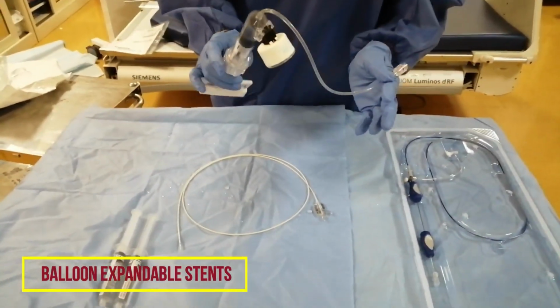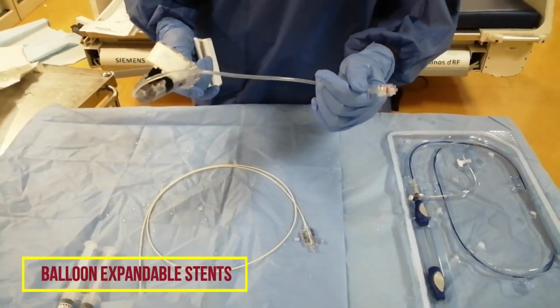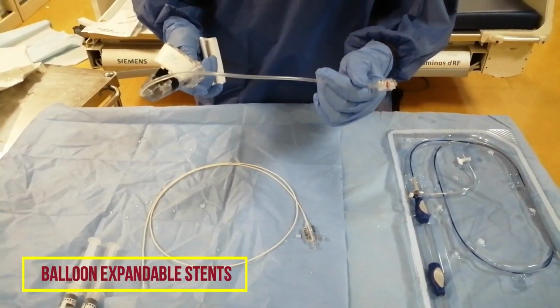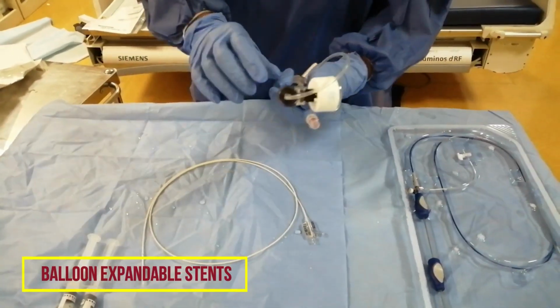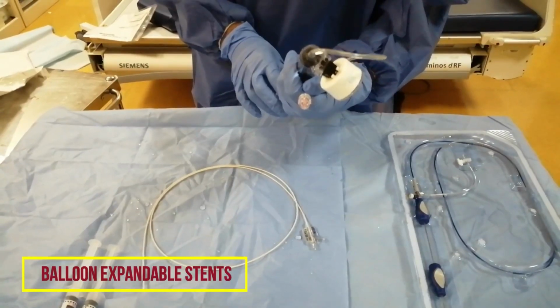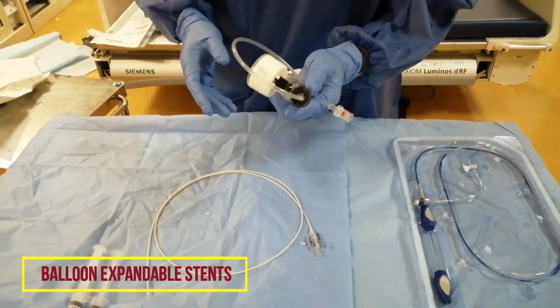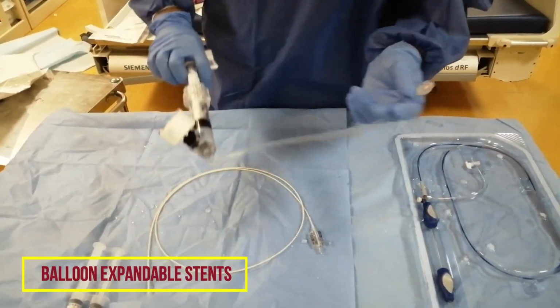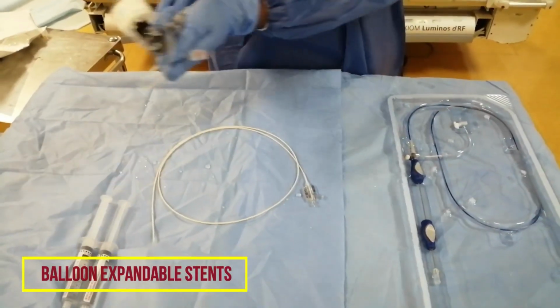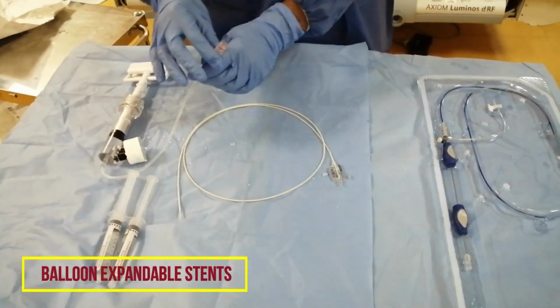This is the pre-prepared inflation device. This is the one we will use in case it is a balloon expandable stent. It is already prepared with half normal saline diluted with half contrast. Sometimes we will use more contrast to get good visibility. This is already loaded and I already primed it without any air, so this is ready to use.